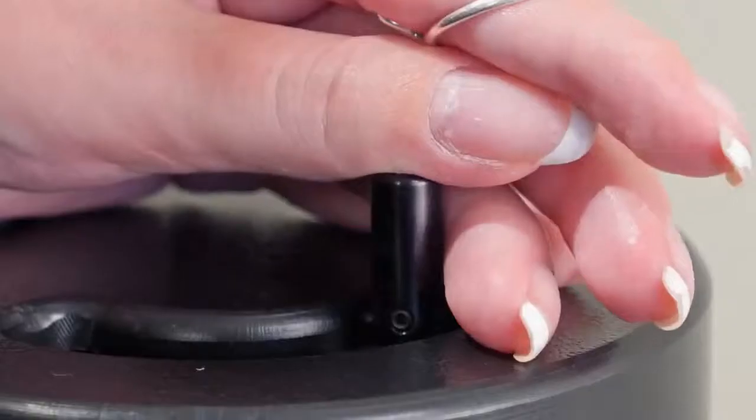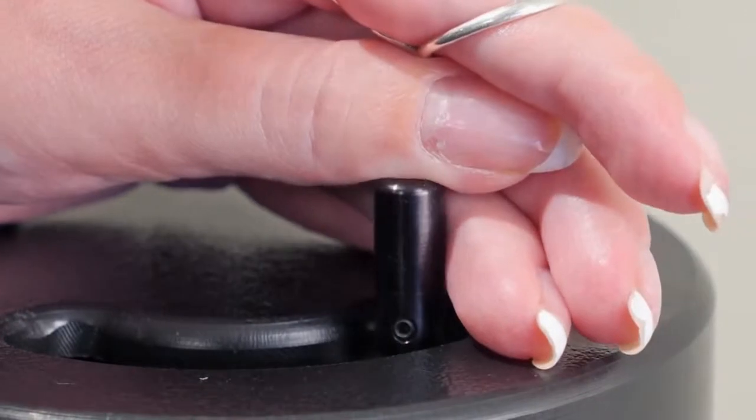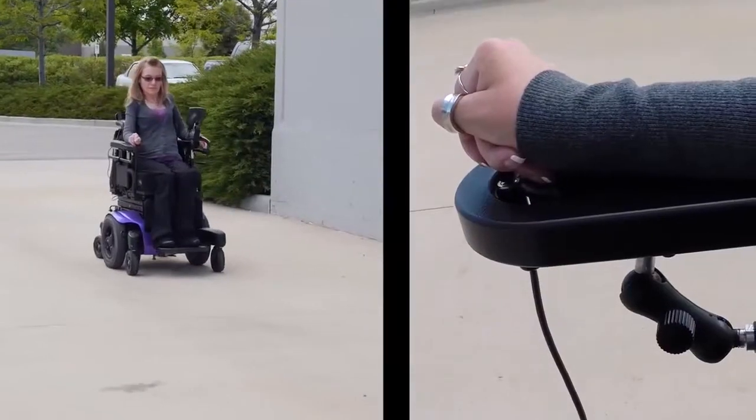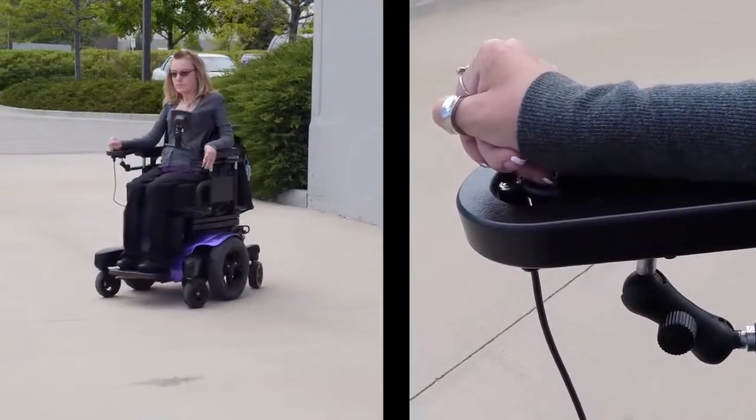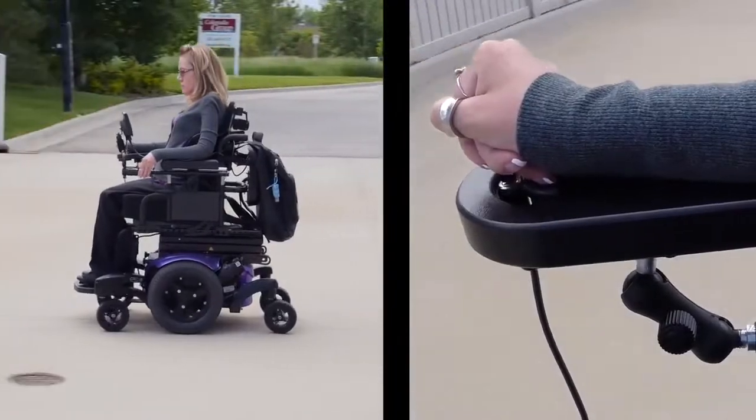The amount of force required to move the chair in any given direction can be adjusted, making it ideal for finger or thumb applications. This joystick only requires 10 to 15 grams of force to move and was designed for clients with profound weakness.